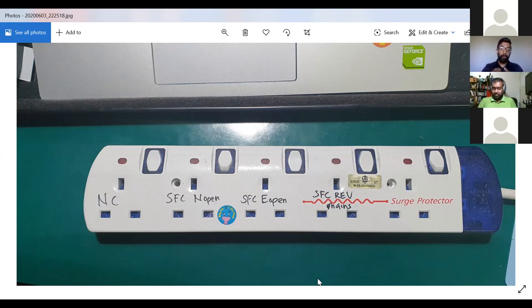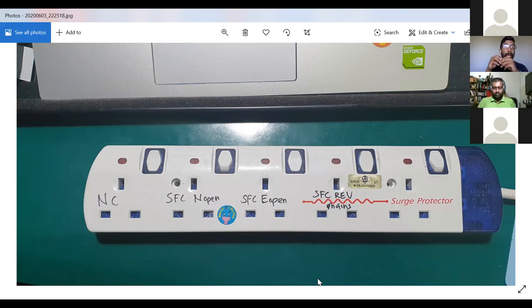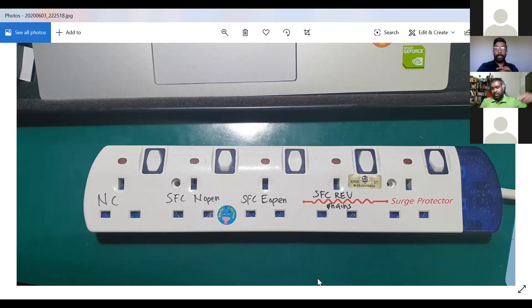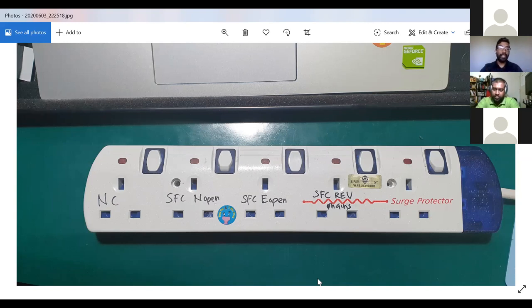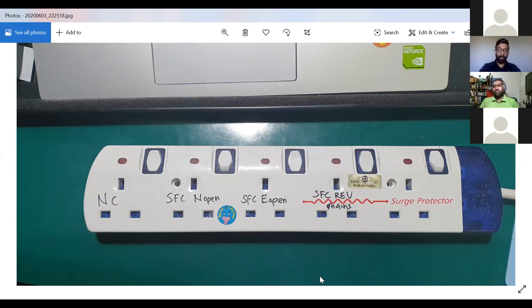This approach lets you create your own electrical safety analyzer — each socket representing a different fault condition — and use your multimeter in the settings described to conduct electrical safety analysis. You have to be very careful that disconnected wires inside the extension are insulated and not touching anything. This is a practical, safe method for performing electrical safety analysis when a dedicated electrical safety analyzer is not available.